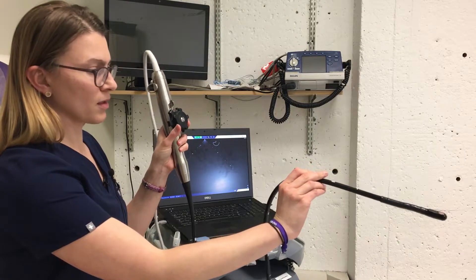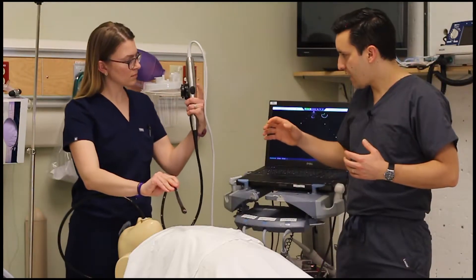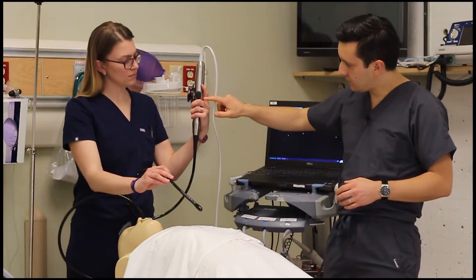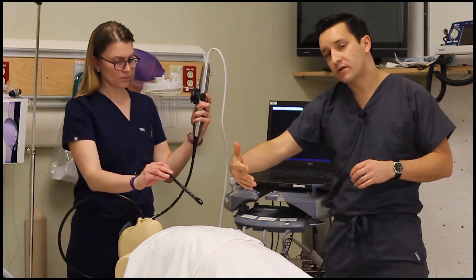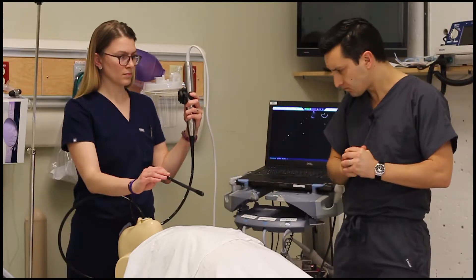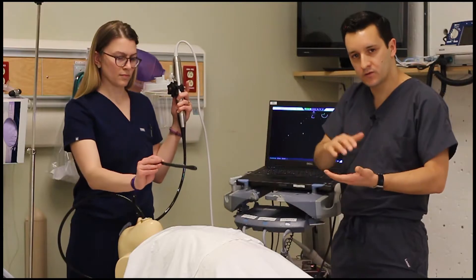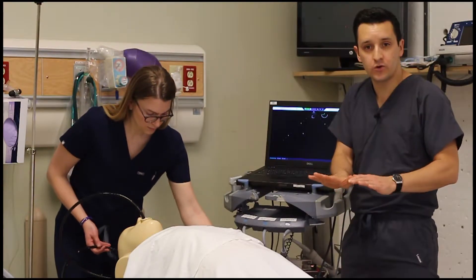With the small wheel, this will move us laterally — to the right and to the left. Now that we have explained the fundamental mechanical movements available in the performance of TEE, the last part is the control that allows modification of the omniplane — that is, rotation of the crystals in the tip of the probe through a 180-degree angle. The inferior button controls rotation of the omniplane all the way to 180, and the button on top brings the omniplane back to zero degrees. Omniplane at zero degrees is a horizontal position, which is our neutral position.